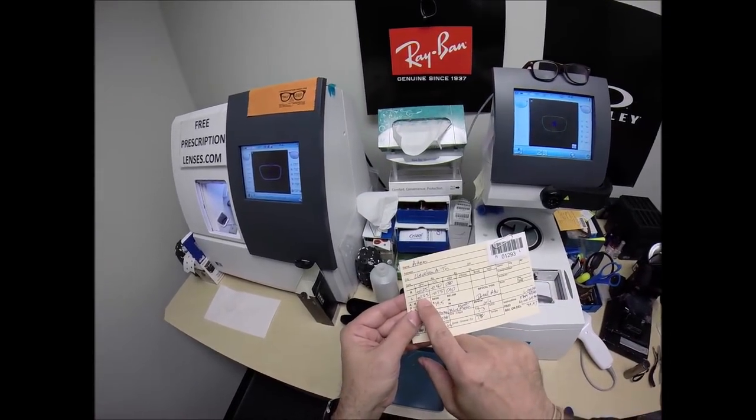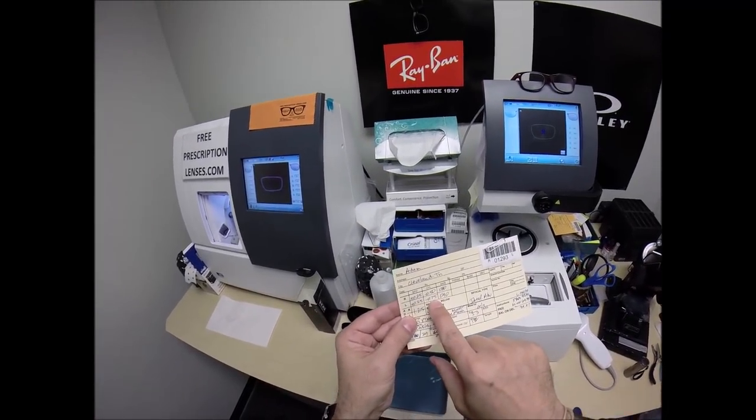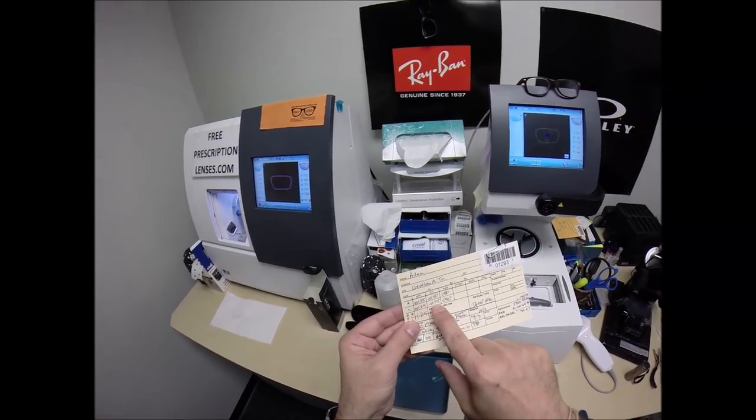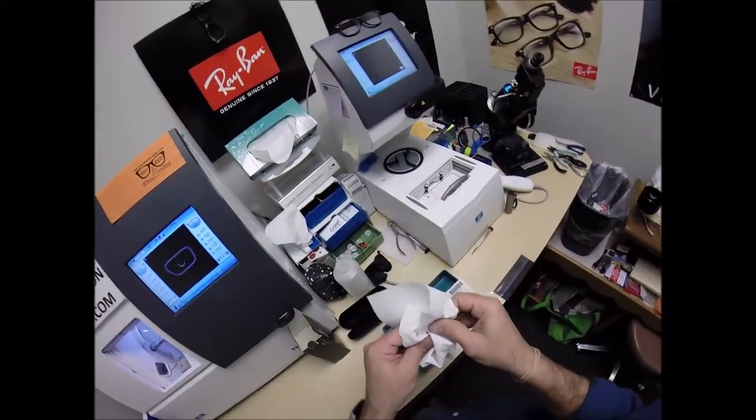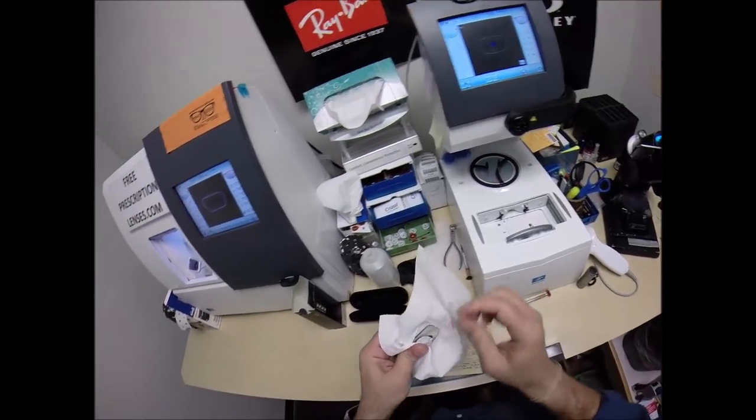The left eye, we're going to end up starting at plus 1/4, end up at minus 50. Because if you had to subtract 75 cents away from 25 cents, you would be 50 cents in the red.